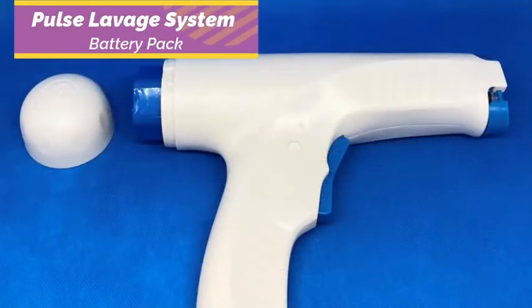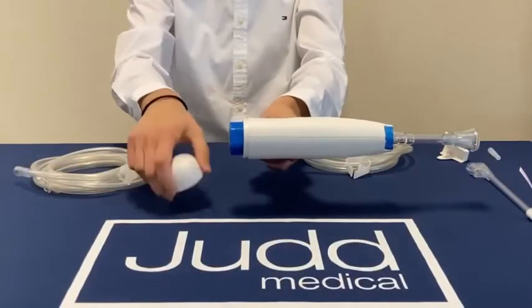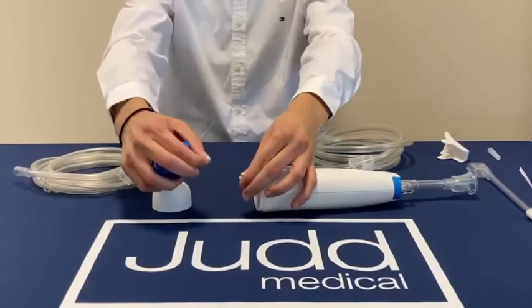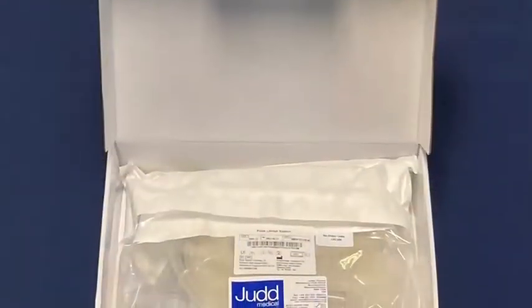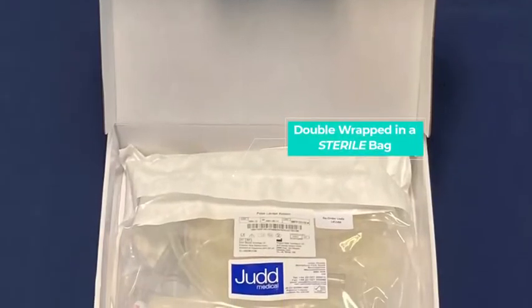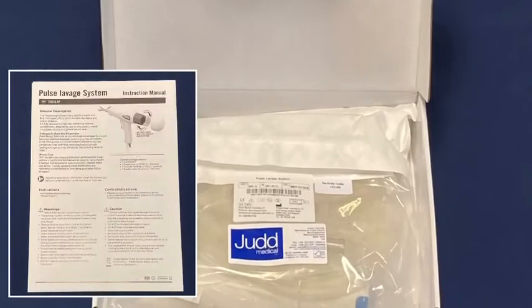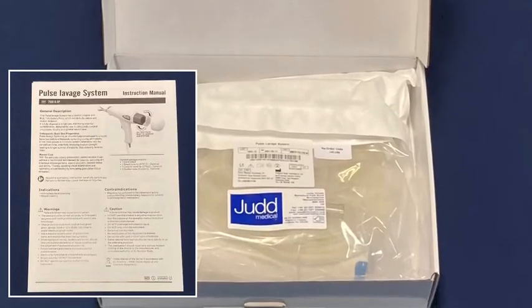The device is powered by 7 AA alkaline batteries conveniently contained in the rear of the handpiece, which can be easily removed after the procedure by rotating the cap clockwise and pulling the battery pack from the housing. The pulse lavage system is lightweight, precise and double wrapped in a sterile bag, which is packed within a sturdy, easy to store cardboard box that also includes instructions for use.